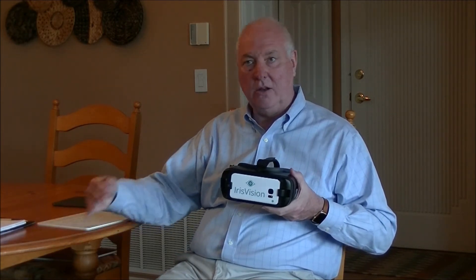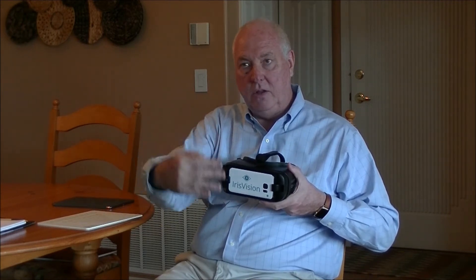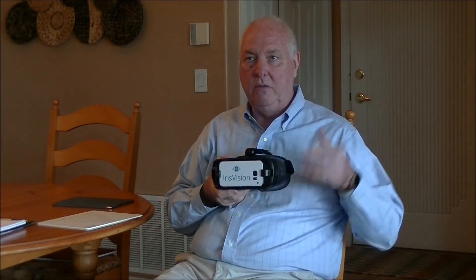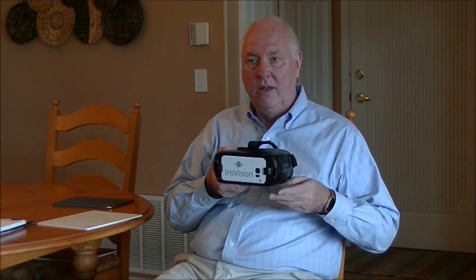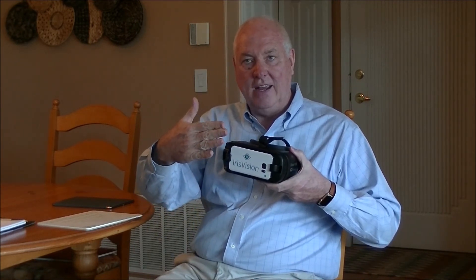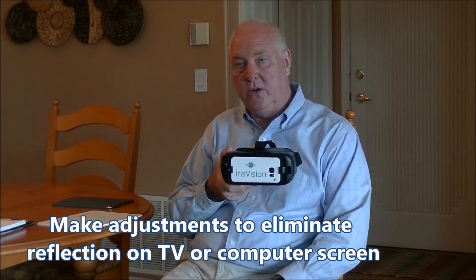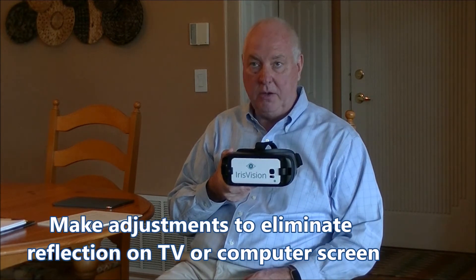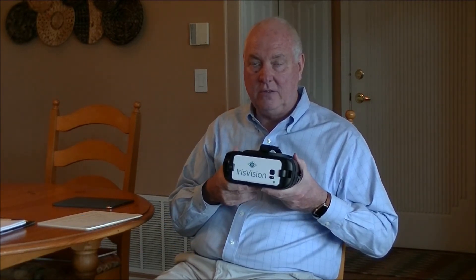In one situation, I went to a person's home and the TV looked completely washed out, because we realized later there was a reflection coming from over my shoulder. All we had to do was tilt the chair a little bit, or we tilted his TV just slightly, enough where the reflection went away from the camera instead of directly into it, and the picture came out perfectly. That could be true also on a computer screen, depending on what other windows are in the room causing reflection.